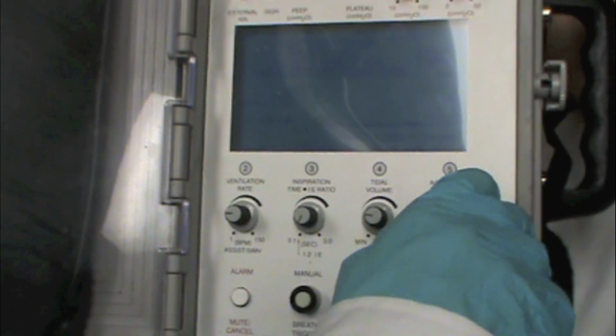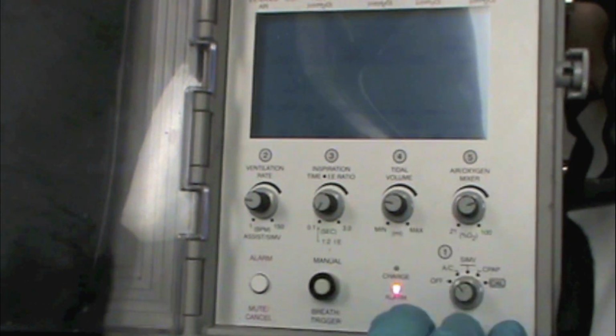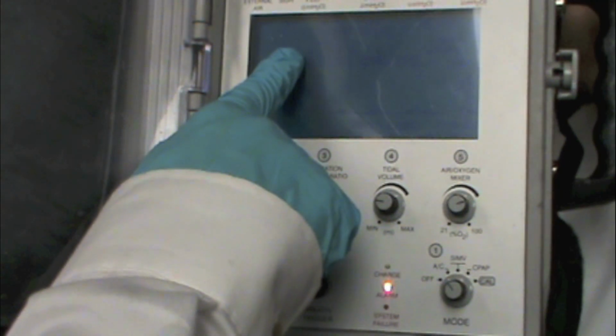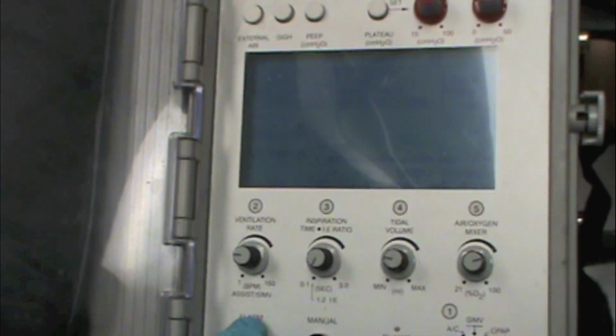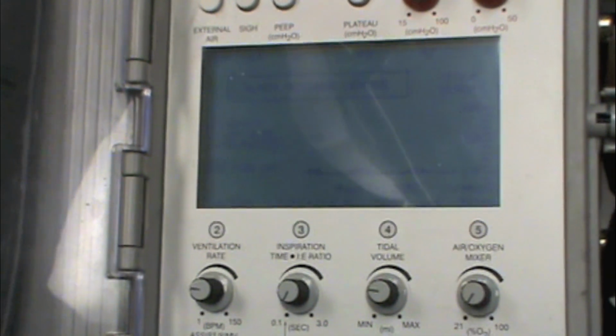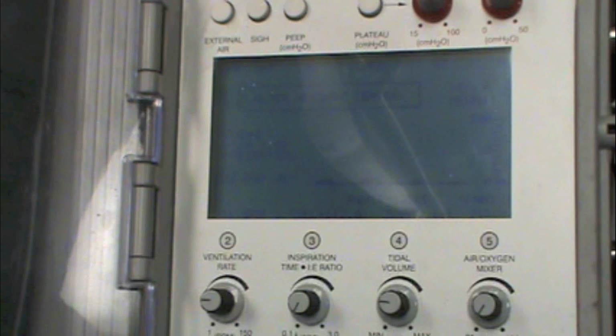So we'll say this patient is on 85% FiO2. And you're going to get an alarm if you don't have enough gas, which we do not. So if I set this thing for higher than it's prepared to deliver, it's going to let us know that there's an oxygen source failure. So it tells you exactly what's going on up here in the alarm, so it allows you to address what to do. So I'm going to bring this back down to 21%. Now you'll see the alarm message center light comes on and everyone's happy.